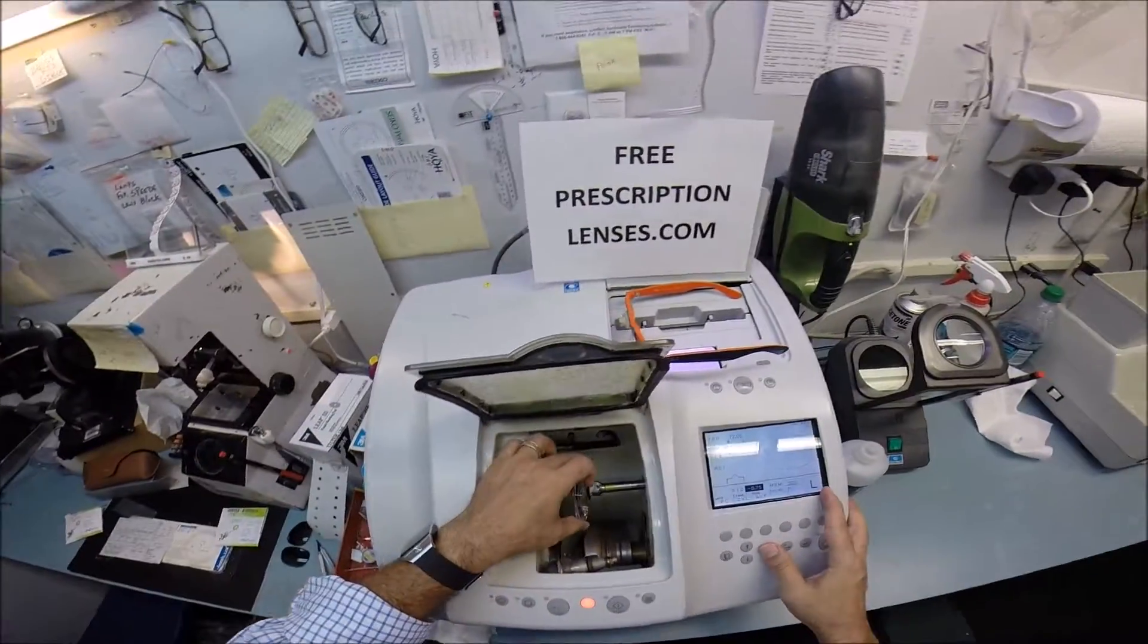So, I'm going to go ahead and start cutting your left. Flip that over to L. And hit start.